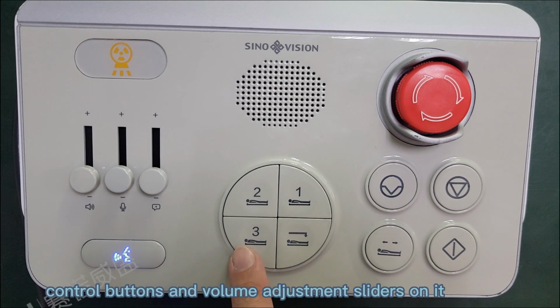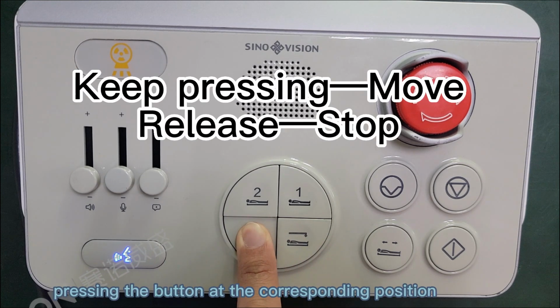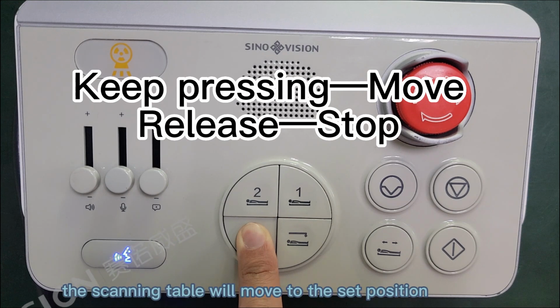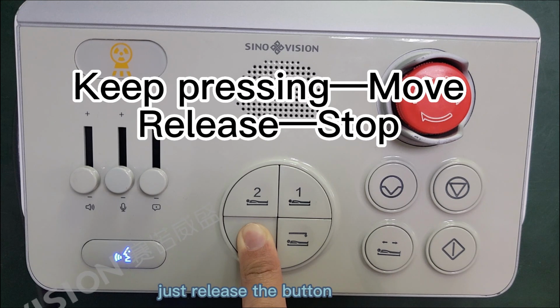The CT control box is used for gantry mechanical and exposure control during scanning inspection. There are various control buttons and volume adjustment sliders on it. First is the one-key positioning button. Select and keep pressing the button at the corresponding position. The scanning table will move to the set position. If you want to stop the moving scanning table, just release the button.